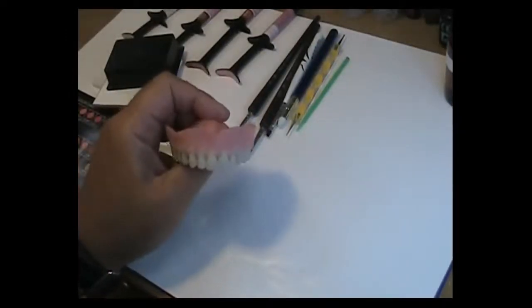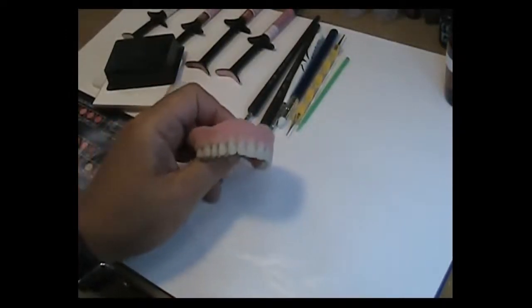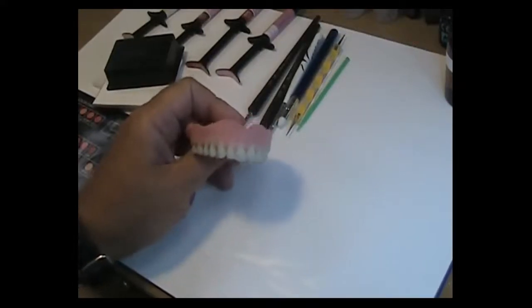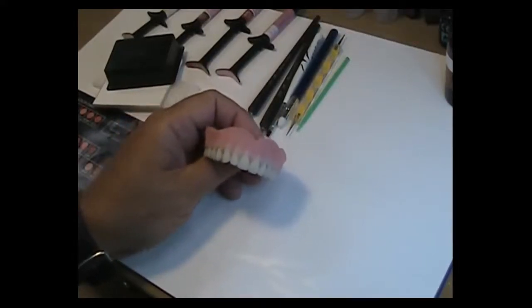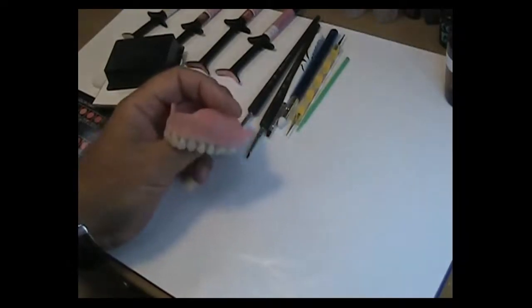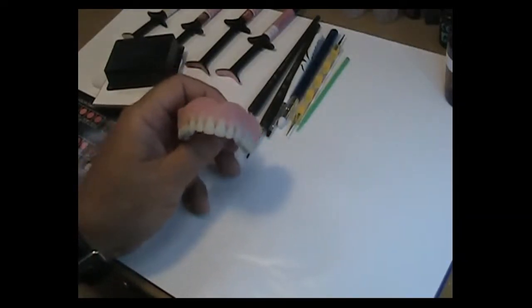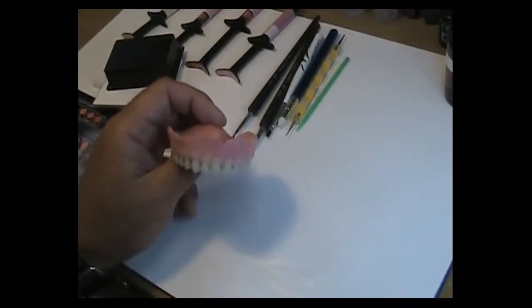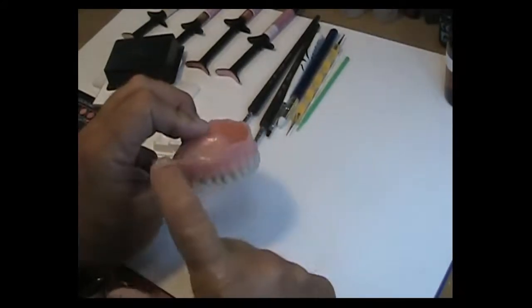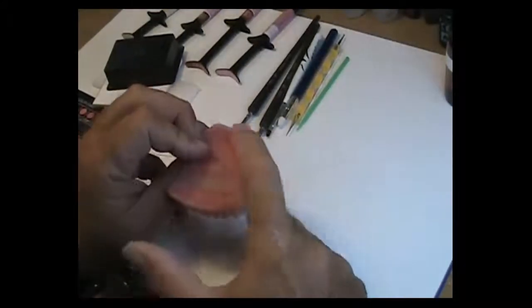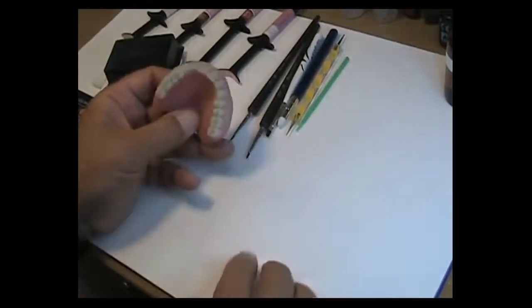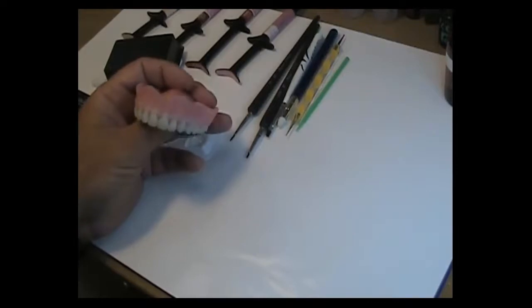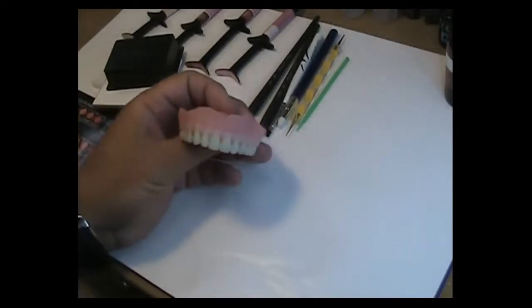One that you've processed. I suggest that you put your character in that denture in wax and then process it to contour. Once that's processed, I finish the case down to the point where it has all the border rolls correct, everything is trimmed to length correctly, everything is smoothed out. Then once I have it all smoothed and pumiced the way I like it, the next step would be to air abrade the entire area.